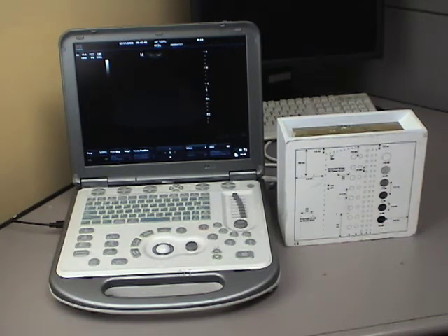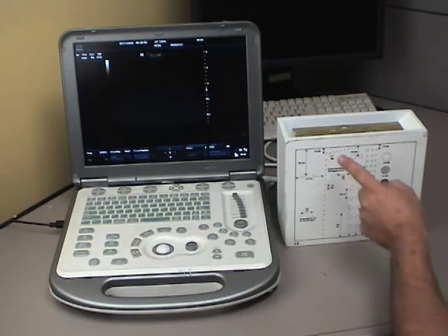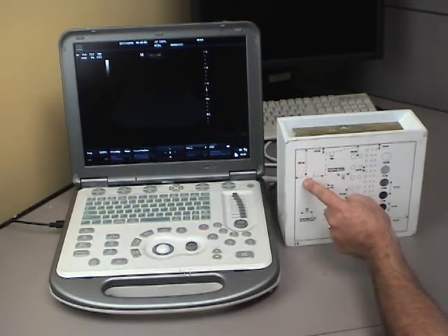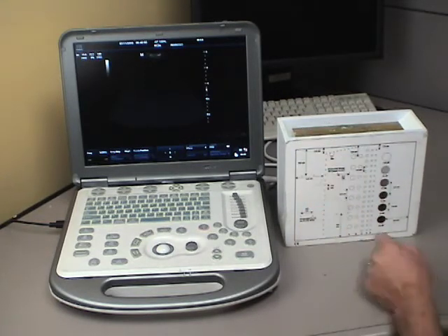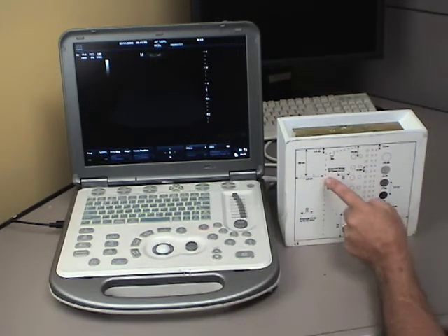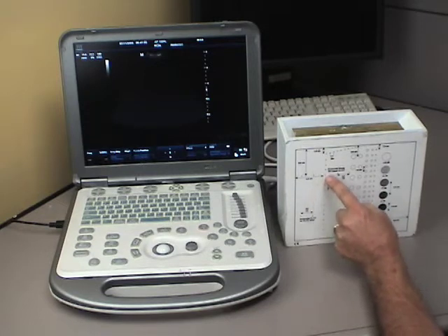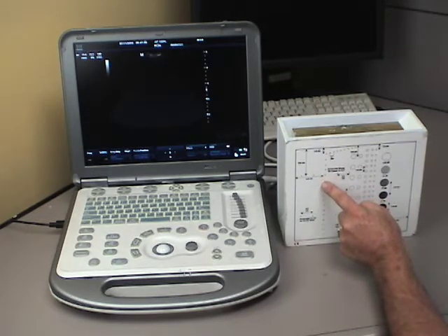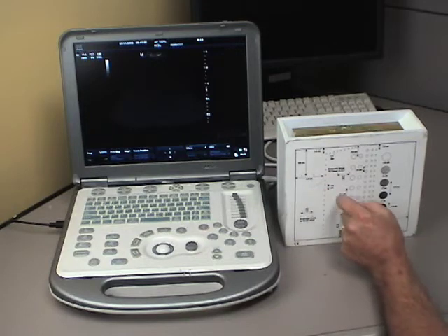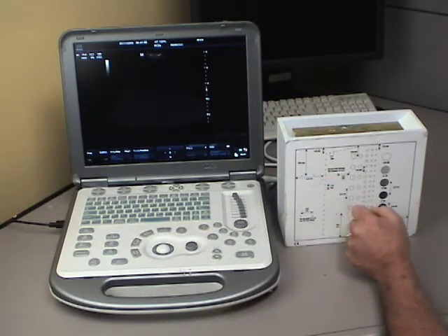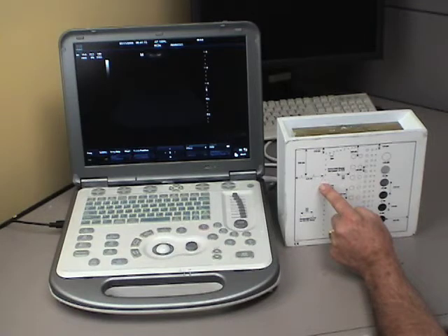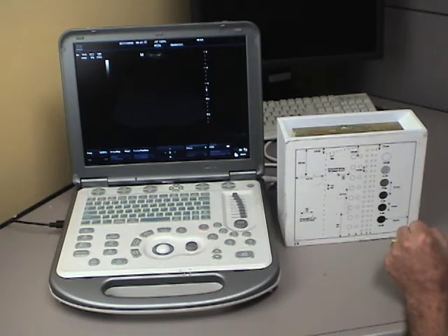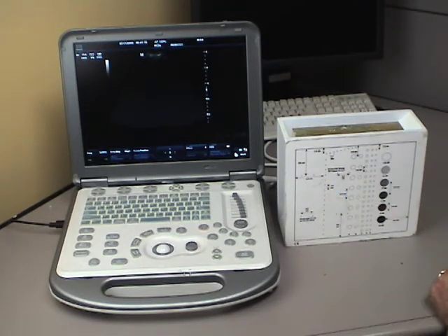The primary functions of the phantom are to show axial and lateral resolution. So it wants to show how good your resolution is going in the direction of the beam and also sideways. This type of wire marker display is particularly good for that. The wires get progressively closer as they come down a curve and turn from axial to lateral. And you'll look at the image and we'll see how closely these wires can be and still be seen as a separate and distinct echo on the monitor.